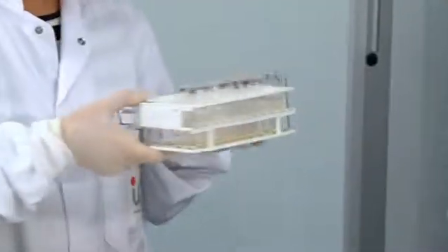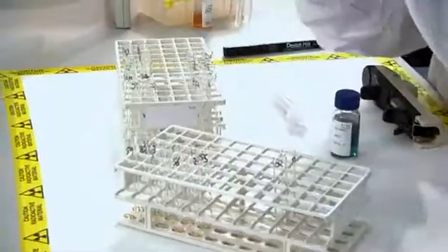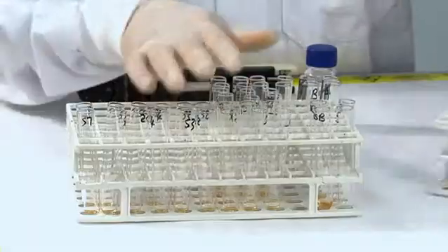Step 2: Assemble all tubes together, sample and control tubes that have gone through extraction procedure, and calibrator tubes.